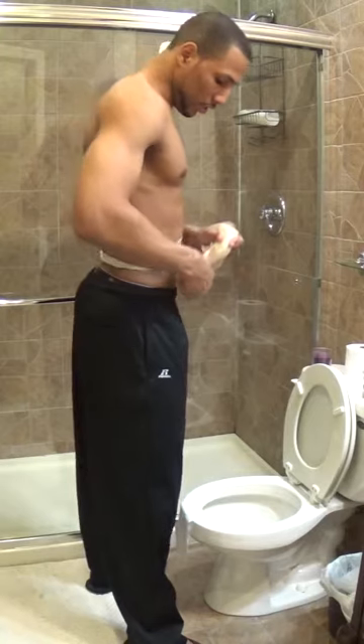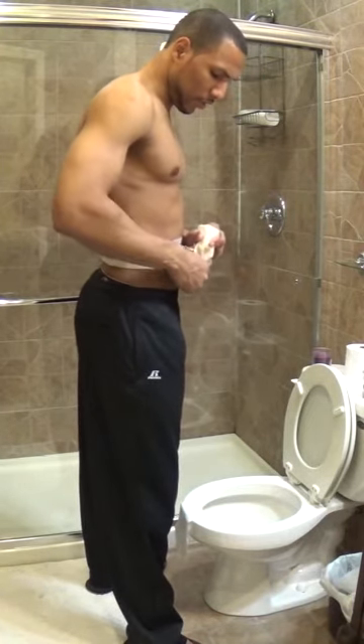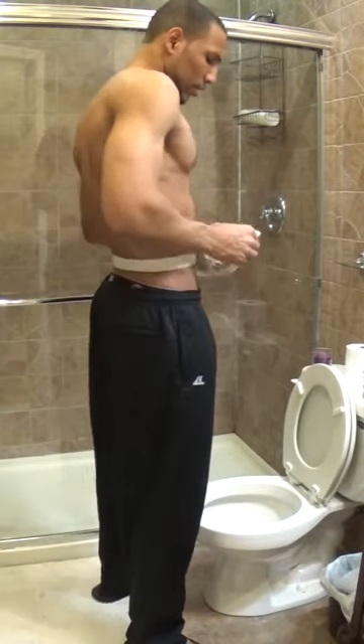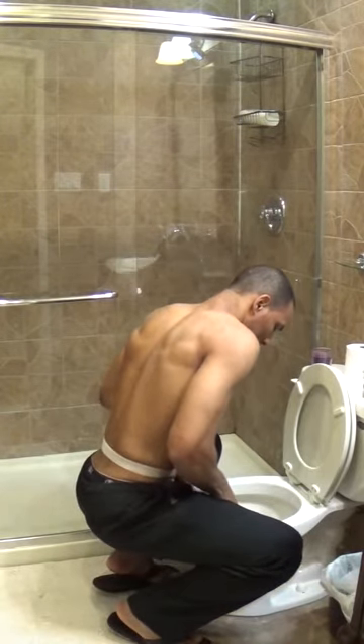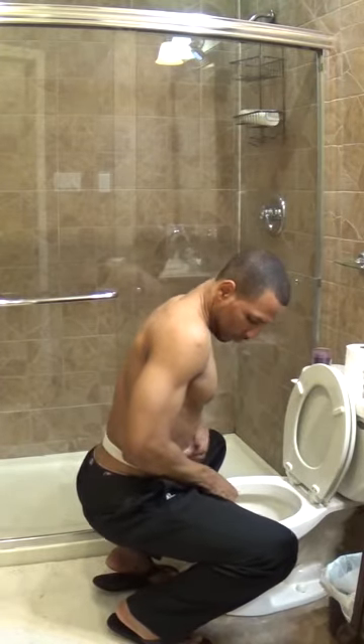When you empty it, you feel better. You're going to clear up all that other excess fecal matter that's left over when you empty your bag. Just kind of massage it around to get it out, then squat back down and empty back out. Just jiggle your bag a little to make everything come out.